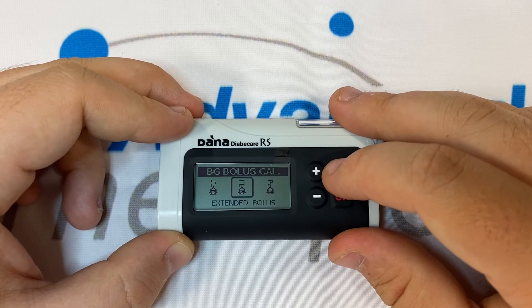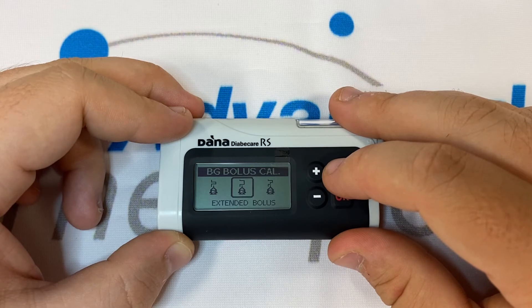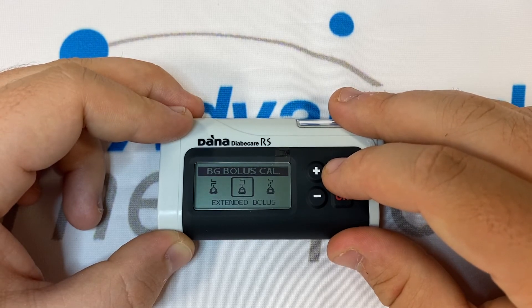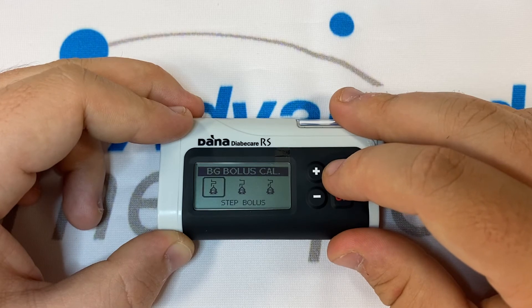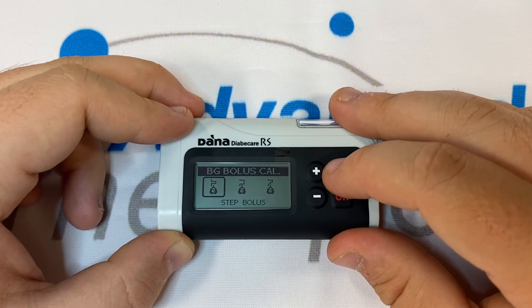Extended will take the whole suggestion and allow you to extend the bolus for up to eight hours in half hour increments. Step will deliver the bolus instantly.